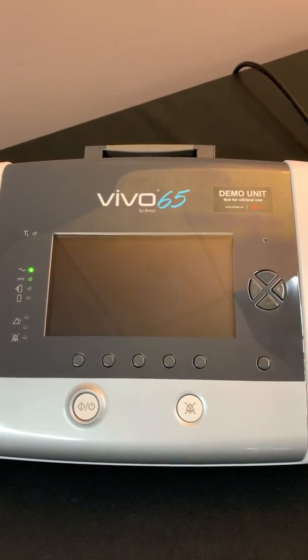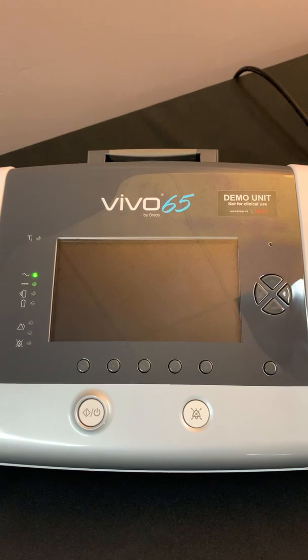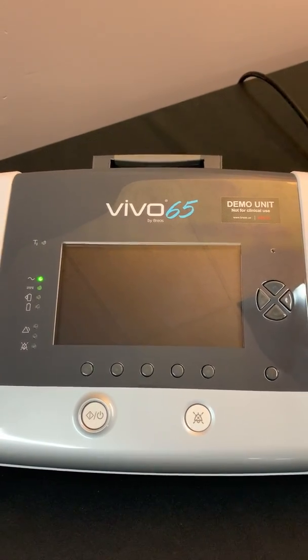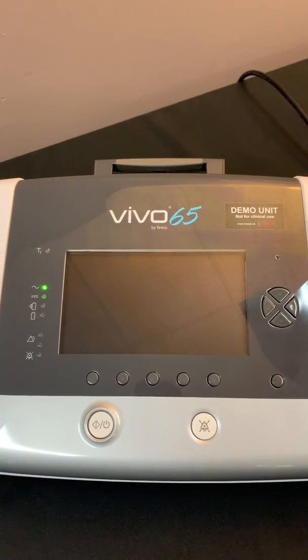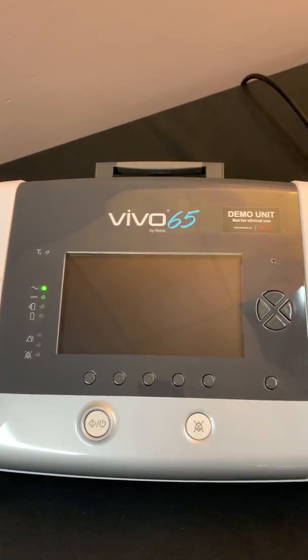Hello, my name is Michael Griggs. I'm the director of clinical services for Breas and over the next couple of minutes I just want to quickly go over how to set up the Vivo 65 with a dual limb circuit.